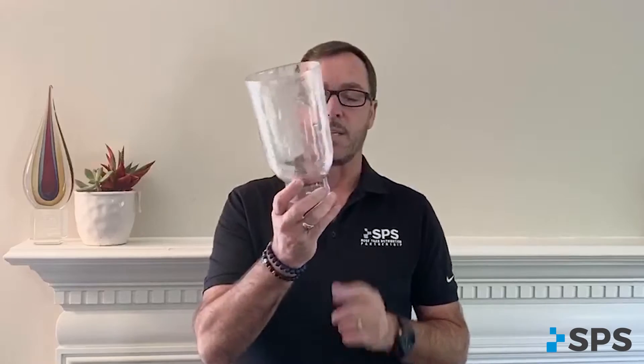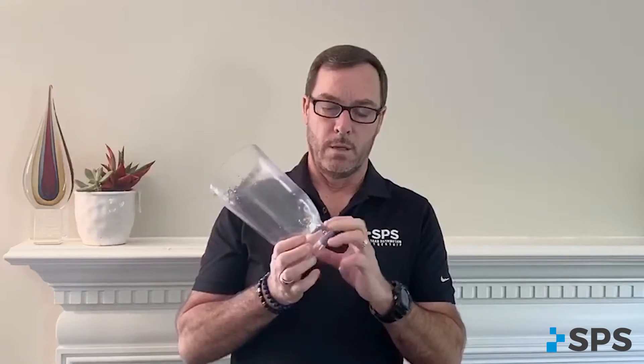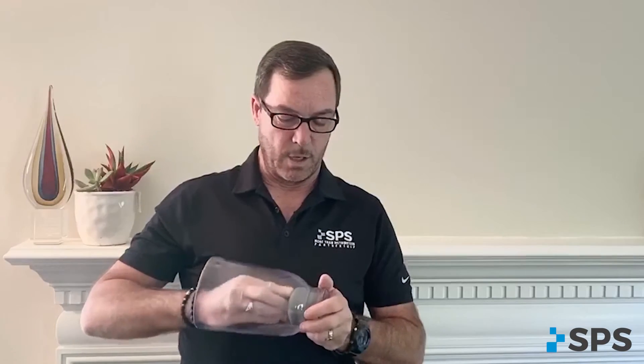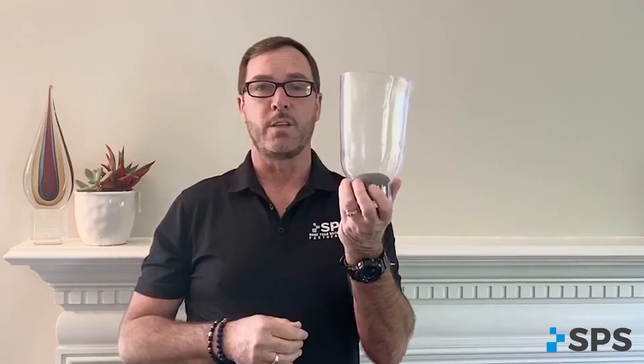You do need to have a fabrication dummy and utilize a four-hole plate for your socket attachment to your foot components. This is a rudimentary design that would show where the system was formed in. The four-hole plate would be inside here, attach your components to it. And then your integrated pump, your VIP, would just be pressed in. And there is a seal O-ring on that. And that's all there is for installation. Extremely easy to use.